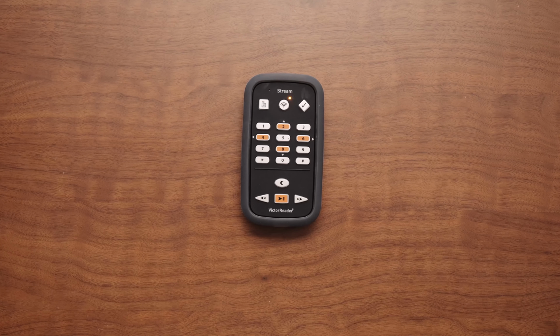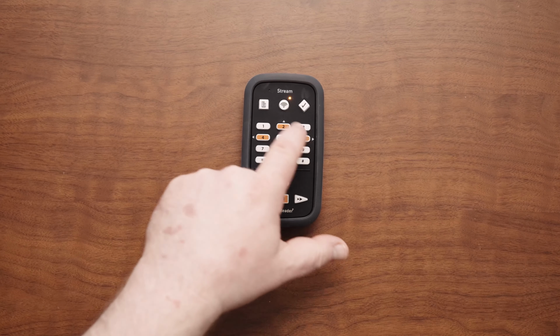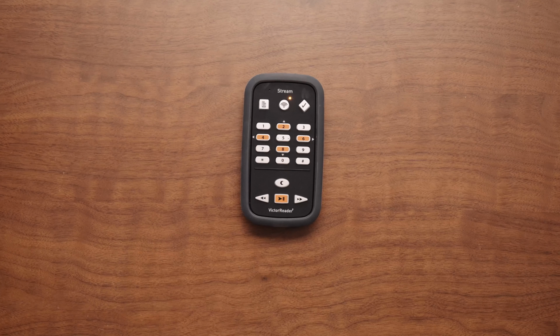You do not need to pause to type successive letters that are on different keys. For example, to enter the word mama, you can press 6262 as quickly as you like.